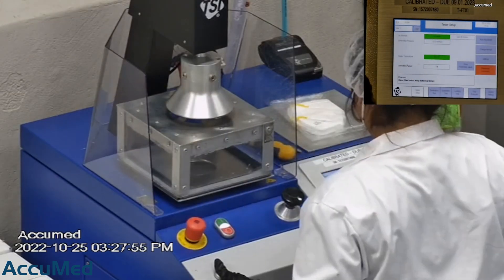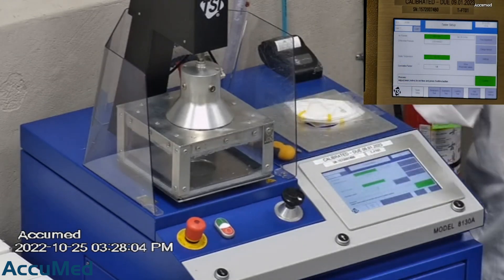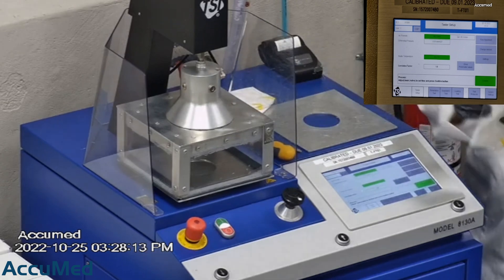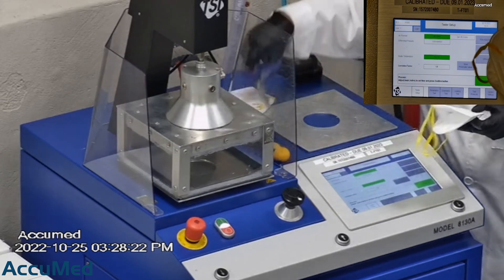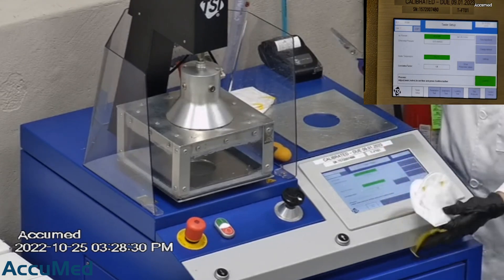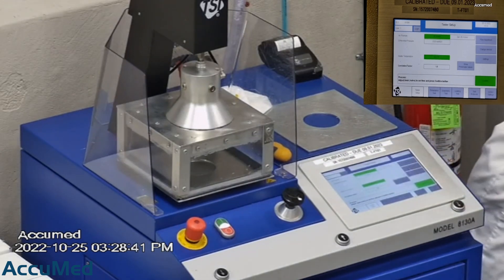Now let's go ahead and run these through our TSI machine and see how they do. This is our TSI machine model 8130A, which is also the same filtration testing machine that NIOSH uses to approve N95 respirators. Our procedure is also inspired by NIOSH. We first run the tester setup and start removing the ear loop bands from the mask before placing it on the testing plate to ensure a proper seal.